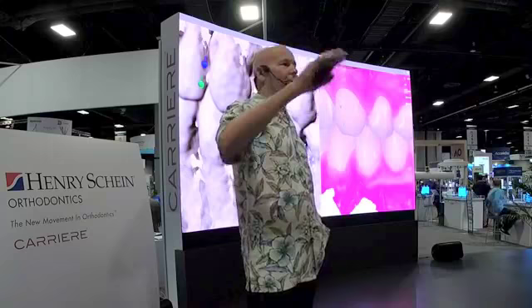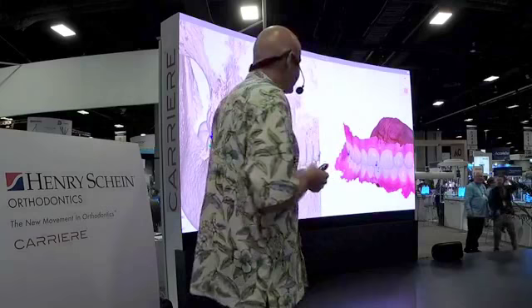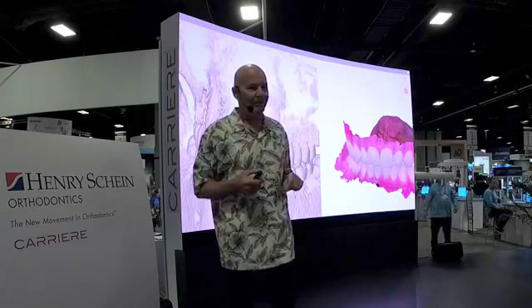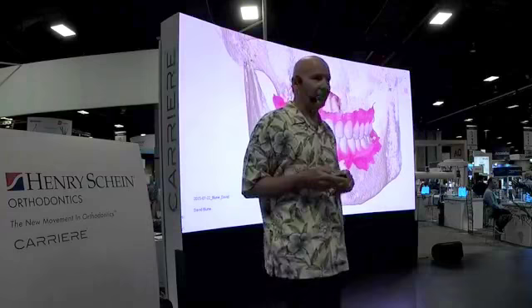You can remember when we first started talking about this a decade ago, we were like, oh, that's really hard, it's going to take forever. And this is a video of the computer screen happening this quickly — you're going to see it in just a second where it just snaps together. You don't have to be an expert; you just match the points. My staff does it for me if I need it done. Before you know it, there you have the cone beam married to the scan, and you have perfectly accurate 3D data. It's almost like magic in the office.